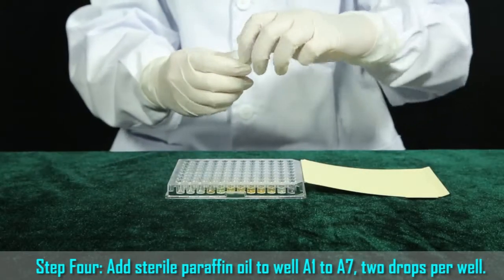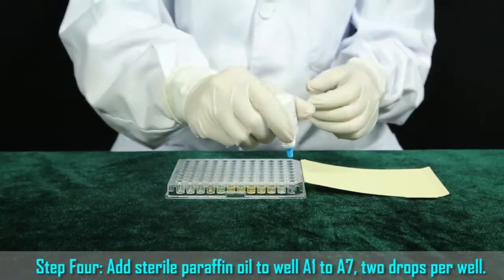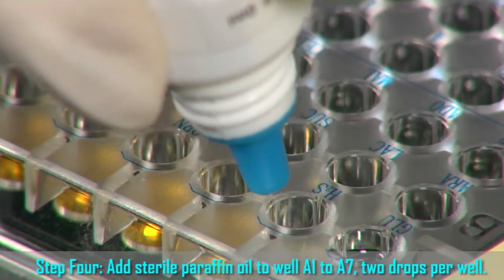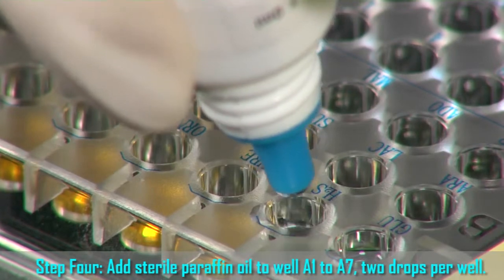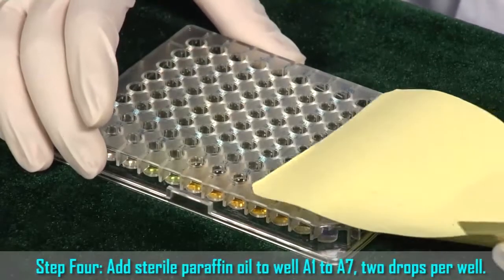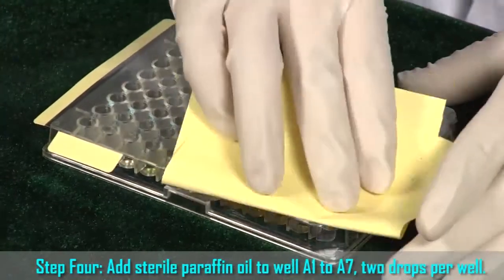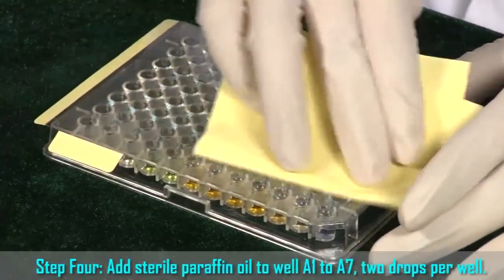Step 4. Add sterile paraffin oil to wells A1 to A7, 2 drops per well. Cover the test card with its plastic film firmly and incubate it at 35 to 37 degrees Celsius.